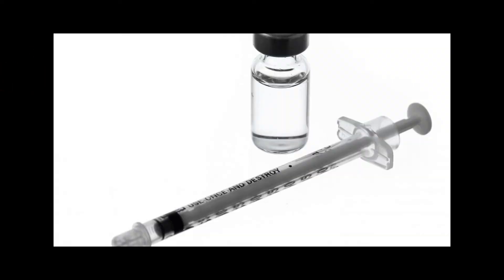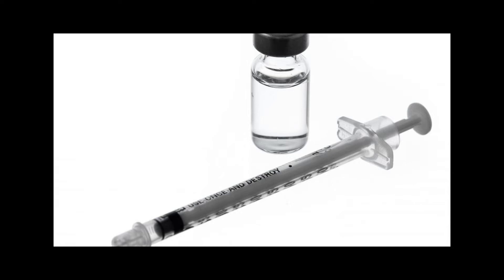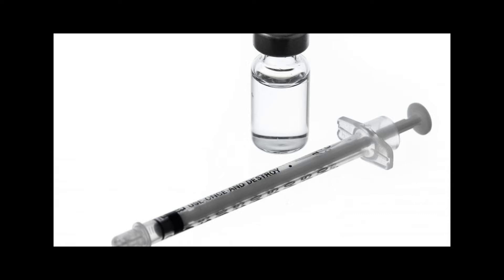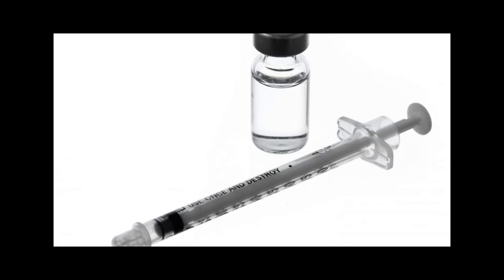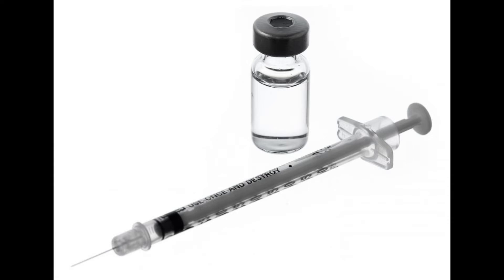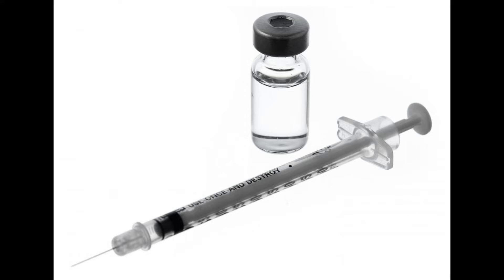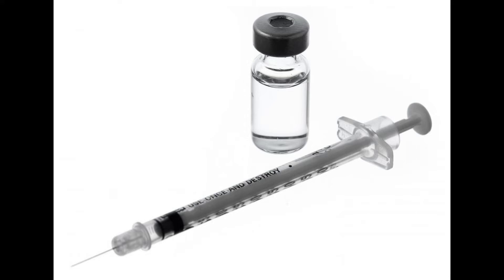What are the different syringe sizes? A syringe is a plastic or glass cylinder that contains a plunger that goes in one end and typically has a needle attached to the other. The term syringe can refer either to all three components — the cylinder, plunger, and needle — or just to the cylinder portion. Syringe sizes are indicated in milliliters and can range from 0.25 ml up to 450 ml.